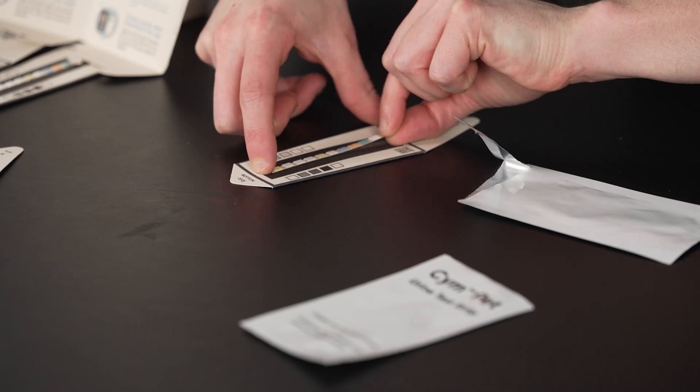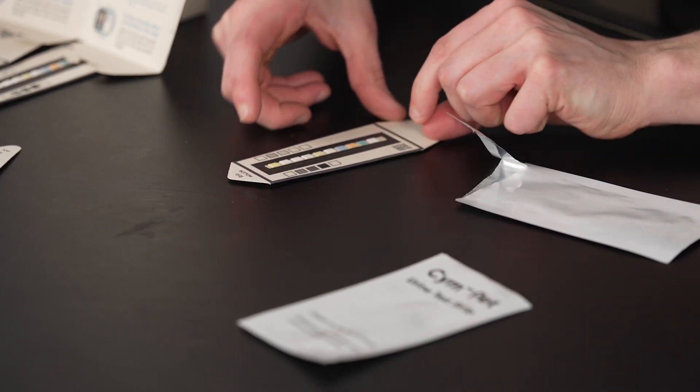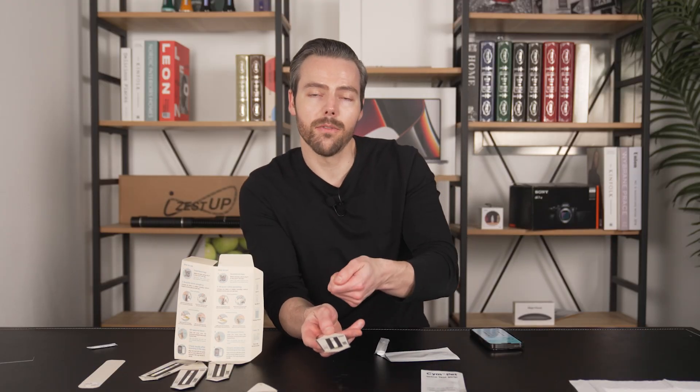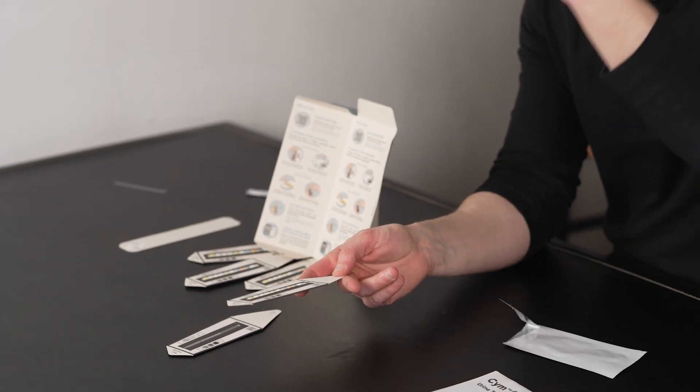Put it down and press it into place — boom, you have it attached. With the first option, you have your assembled boat and strip. Reach under the animal while it's doing its business, receive the sample, and then you're going to check it with your phone. You take a picture with your phone and then the phone analyzes it.